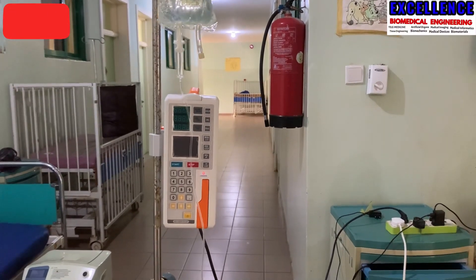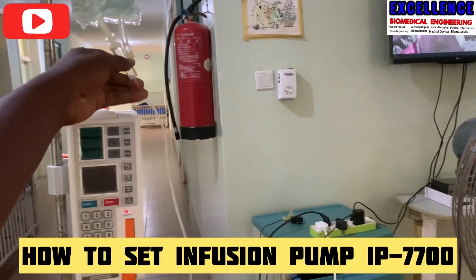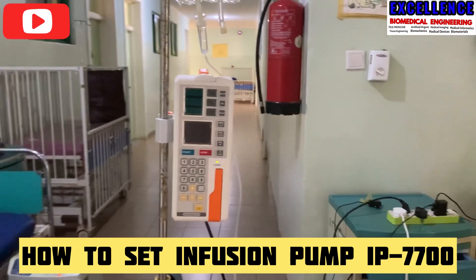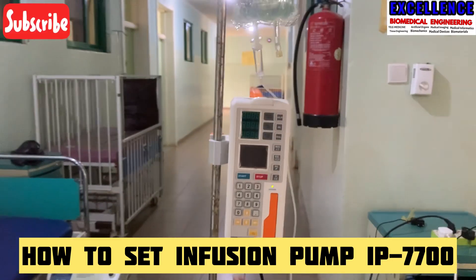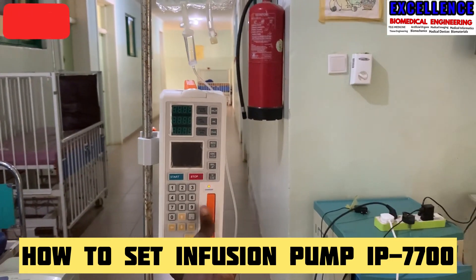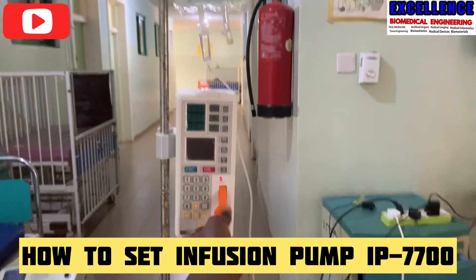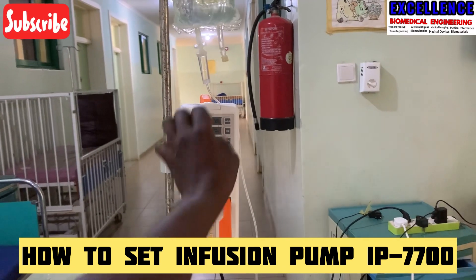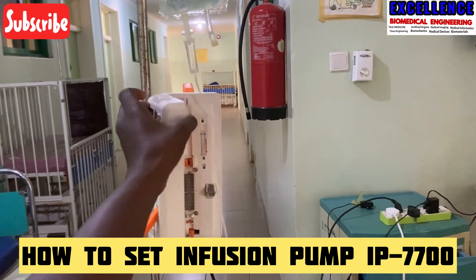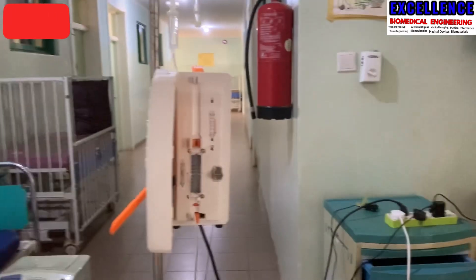Hello, good morning. In this video, we are going to show you guys how to set up your IV set on this infusion pump, and also how to delete the data after being used.